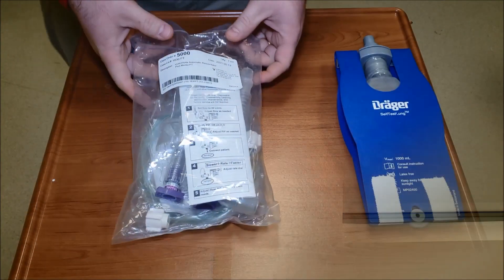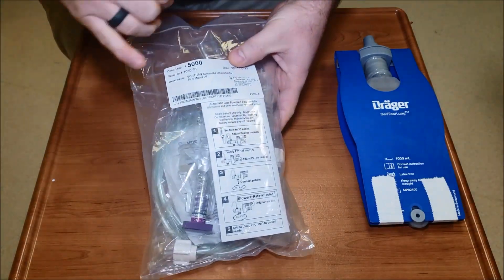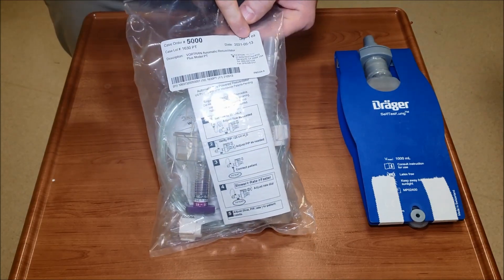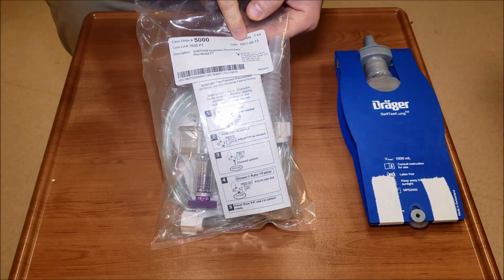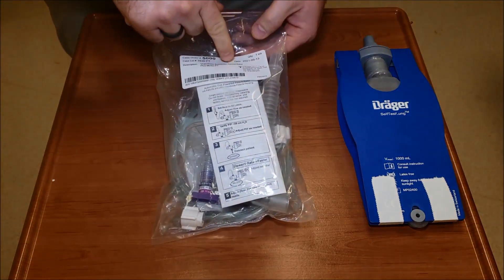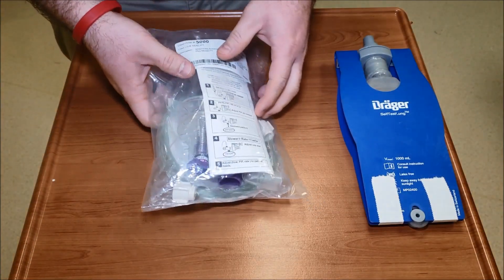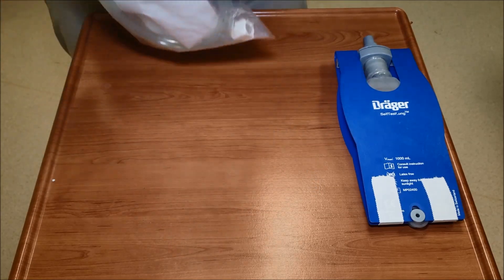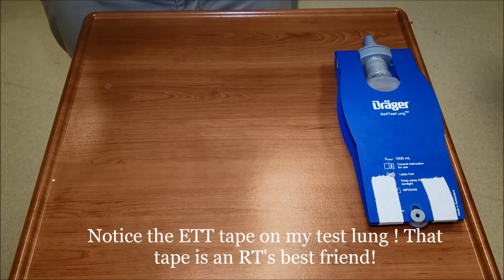Let's unpackage this Vortran. You can see here Vortran automatic resuscitator, really important 5-13-2021 - that date's really important. These do expire and what happens is there's a diaphragm in here that becomes really sticky and it will not cycle properly.